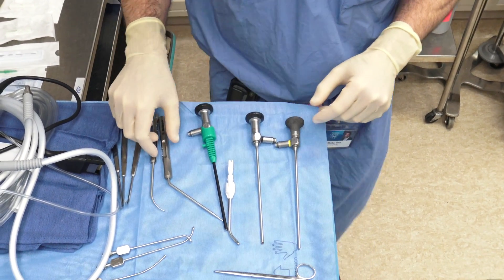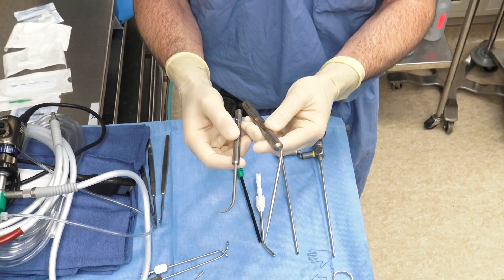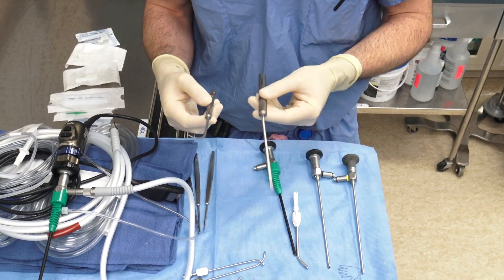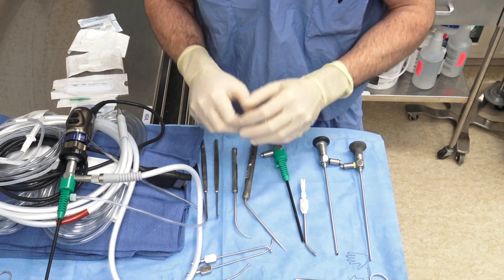For navigation, I typically use a straight pointer and a curved pointer. These are good for the ethmoid and sphenoid sinus and helpful in the frontal sinus. You can also navigate several instruments, including the microdebrider suctions, which you may encounter during your rotations.